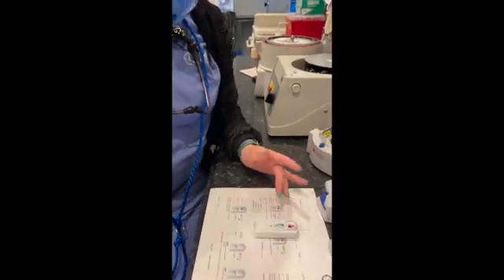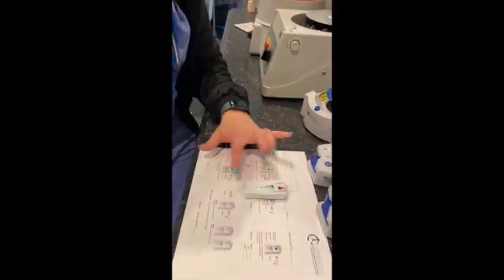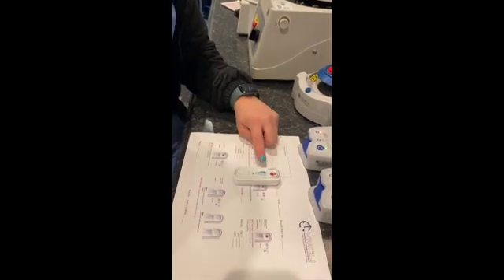So I'm starting to see it, and I snap it down. I set an 8-minute timer. So this is our results. It's been 8 minutes. The only dot that is visible is the positive control. So this patient is negative for the heartworm, the Lyme, the Ehrlichia, and the Anaplasma.